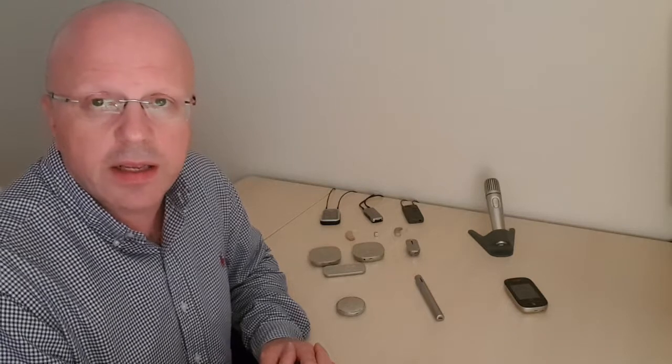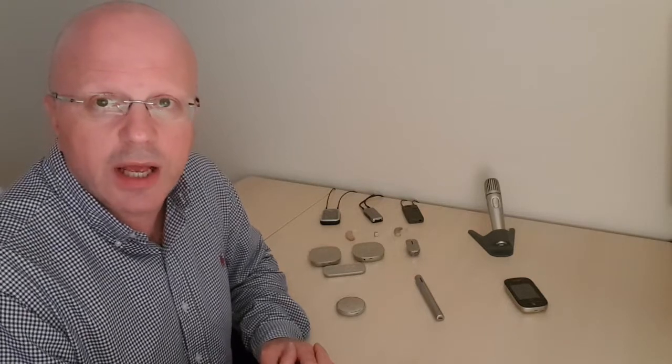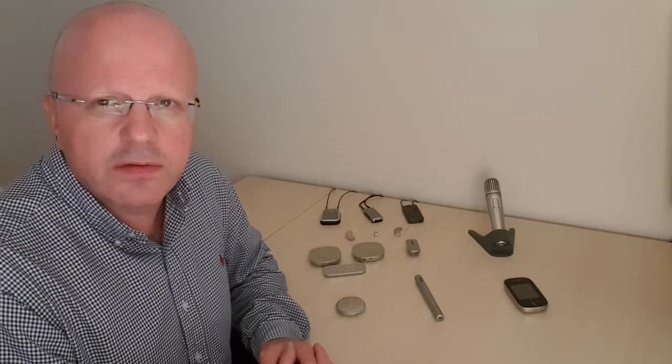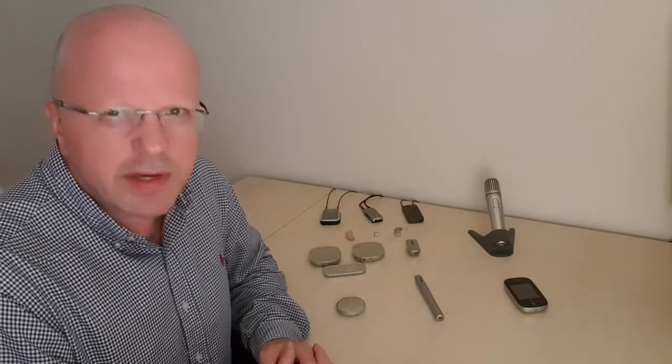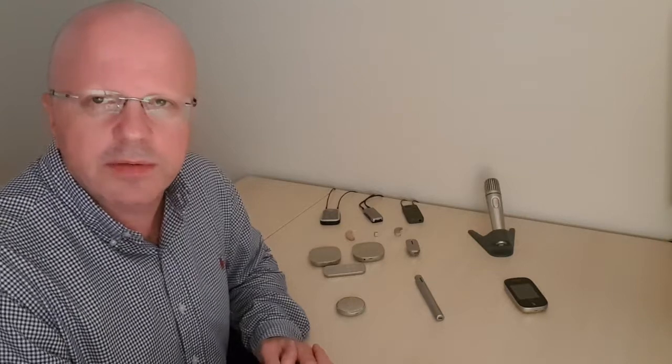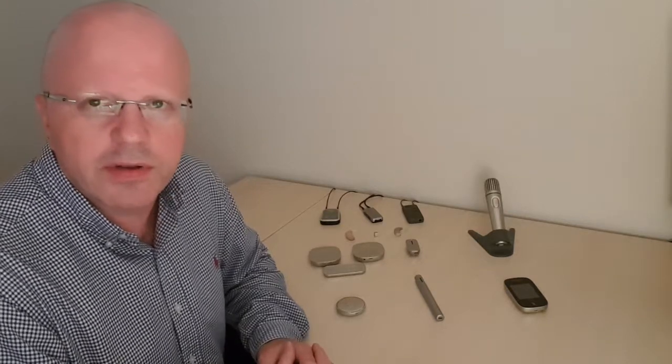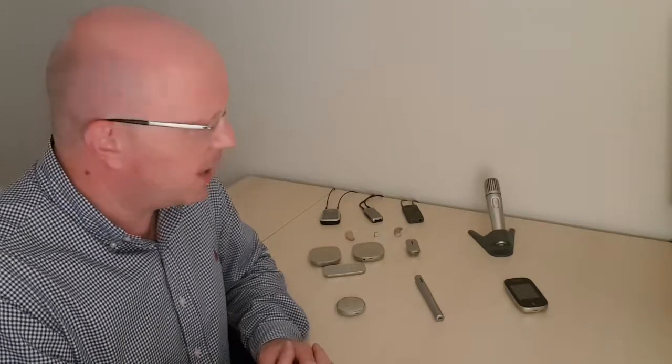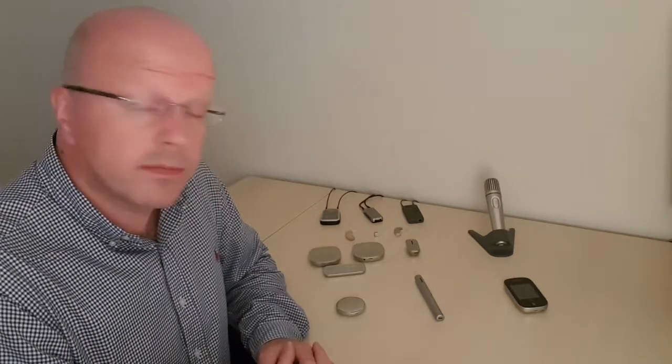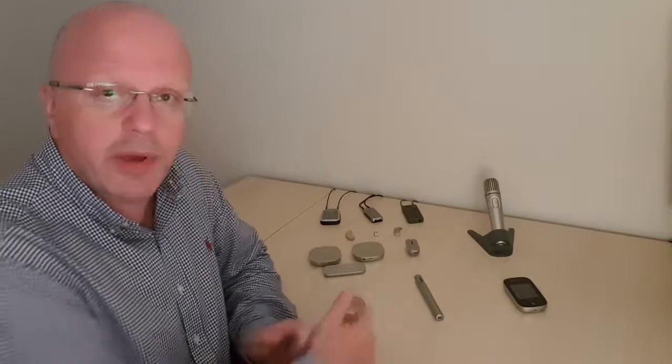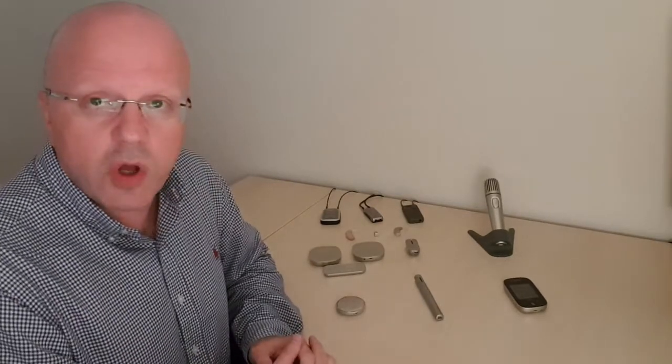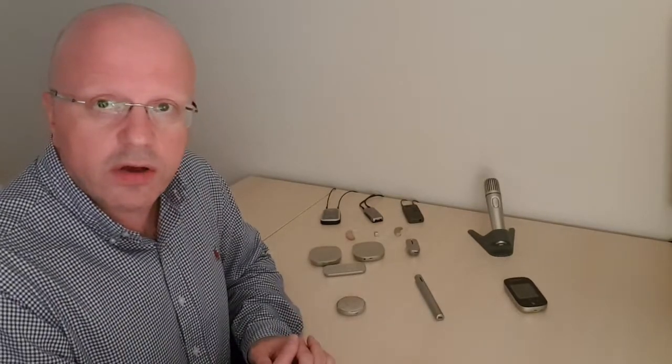And a twin pack, a pair of table mics, you can cover a table up to 25, perhaps something like that. Maybe you could stretch it a little bit more than that. But basically the Select and the Pen are good for smaller groups and noise.